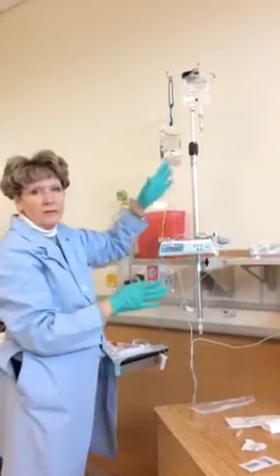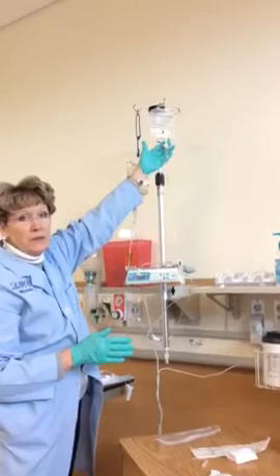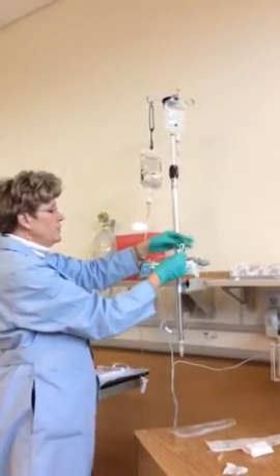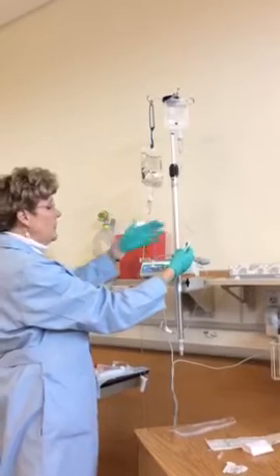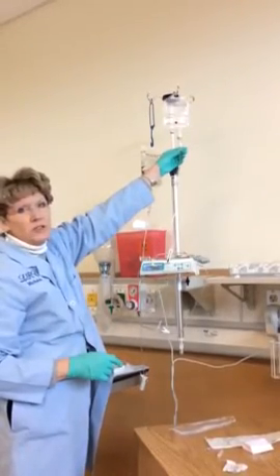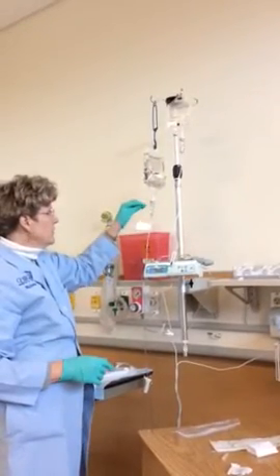So before I ever leave the room, I look up, I make sure that this IV piggyback is indeed dripping before I leave, and that this one has stopped. Probably the most common mistake is that folks forget to open the roller clamp. So let's see what happens if I do close this. If I forgot to open this and I started it, this isn't dripping anymore. It stopped. But guess who is dripping? My bag down here will be dripping. So here goes my drops here.